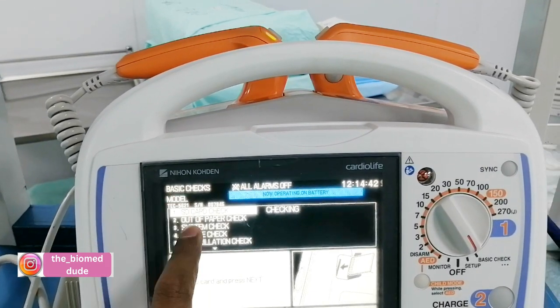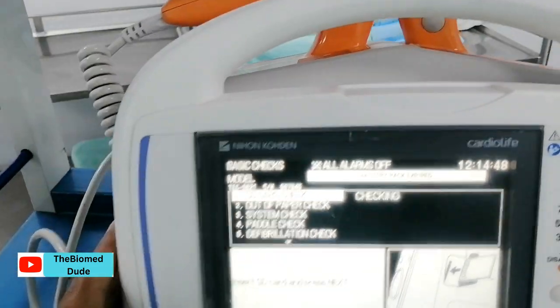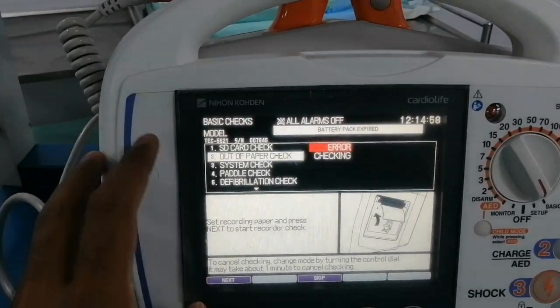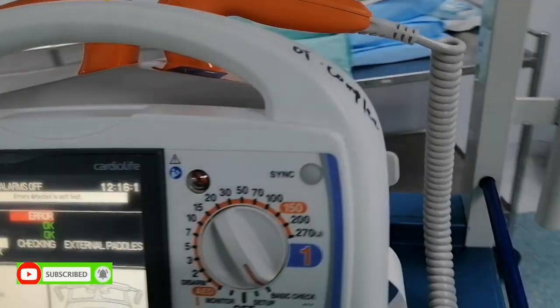Number one is the SD card check. The SD card is inserted here — if you have an SD card it will be accepted, otherwise you can skip it using the next switch. I don't have an SD card, so I just skip this step.